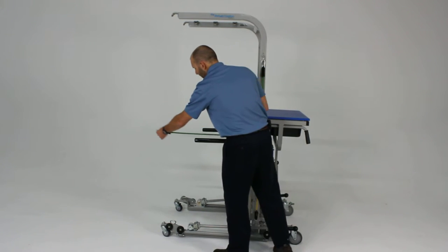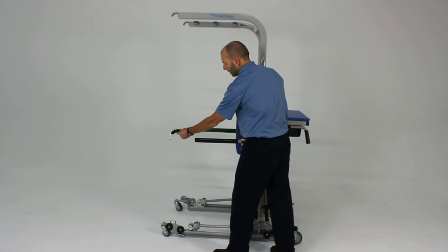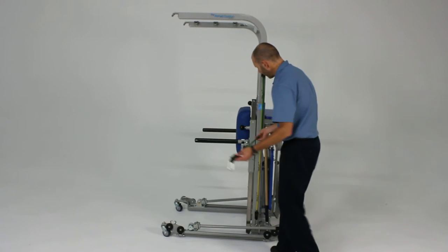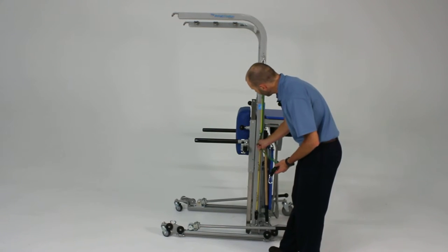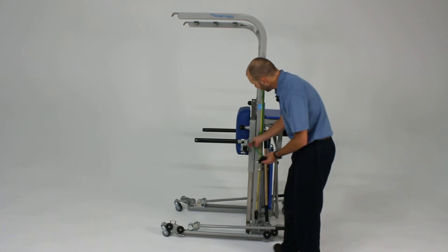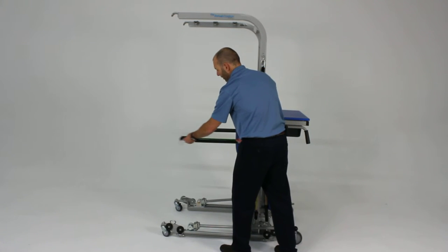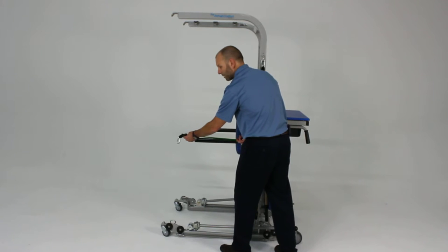Then I have it coming out at this angle. If I want to adjust the length, I can quickly do that by simply wrapping it around the angled attachments here to fine-tune the amount of resistance provided to the patient.